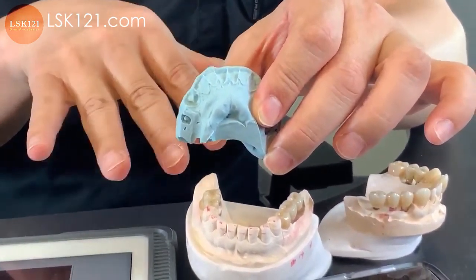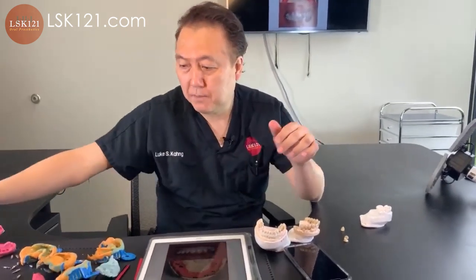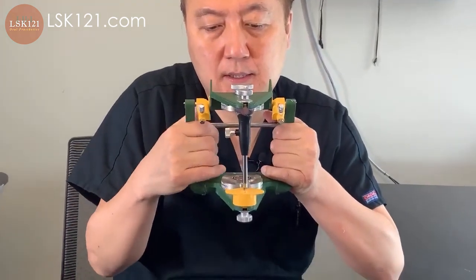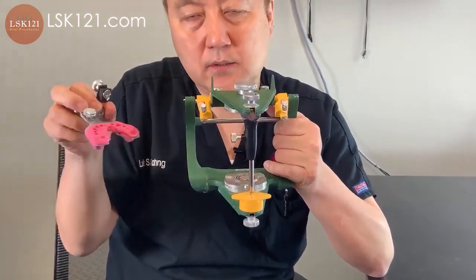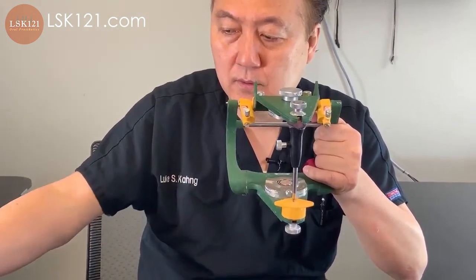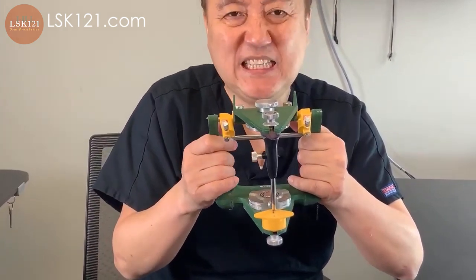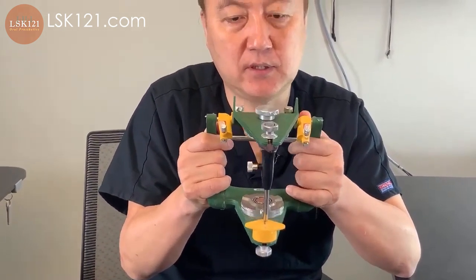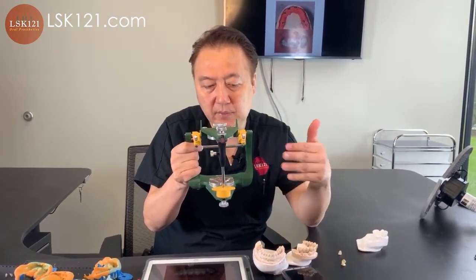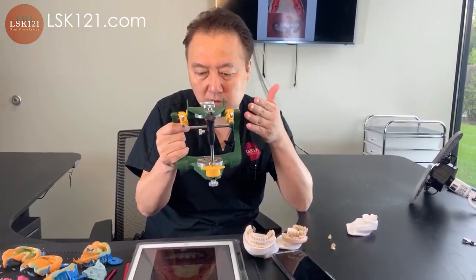So what we did is make the putty, then make sure the upper study model and the prep — just like this — trying to get the same occlusion, then get the bite from the top and transfer it here. Then we mount together with the lower, which is the cross-mounting from putty technique. This is not easy, so I'll go over it later in more detail. Without correct diagnosis and correct bite mounting, everything is messed up. So I have to concentrate more on the bite here. We probably spend — I would say — six to eight hours easily just to mount it correctly.